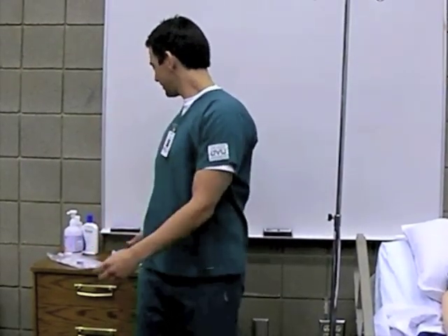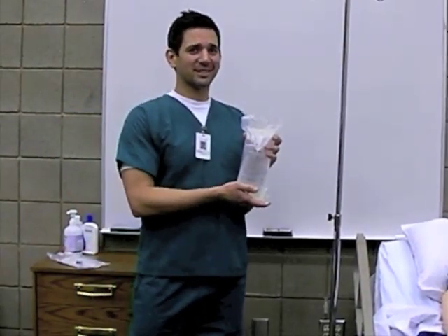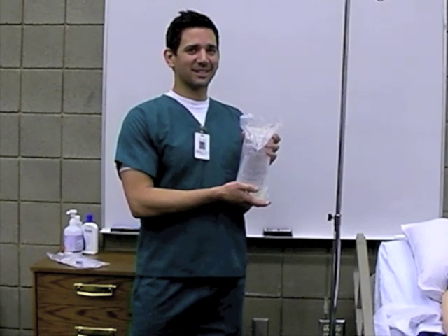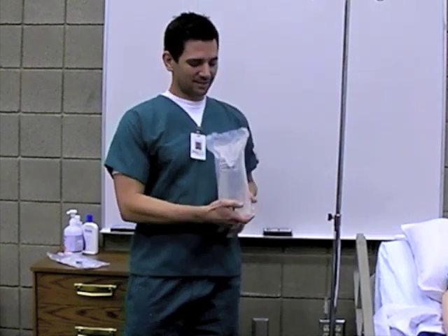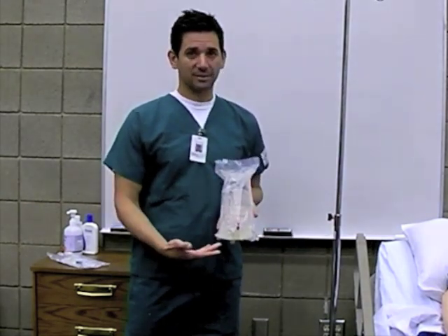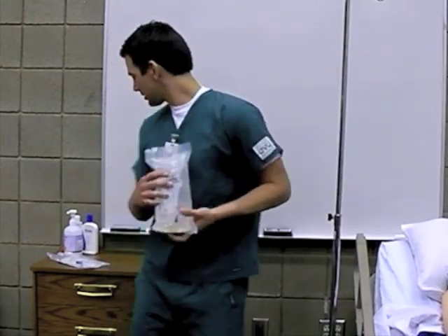First we will be gathering our supplies for this demonstration. This is our bag of fluid, which for this demonstration is filled with normal saline, often referred to as NS. This is the IV pole where we will be hanging our IV solution. Next, we will grab the administration set.